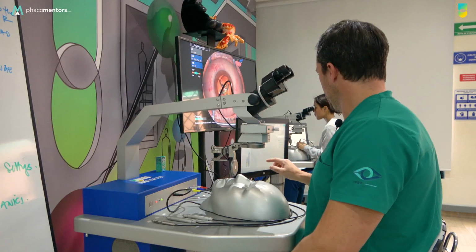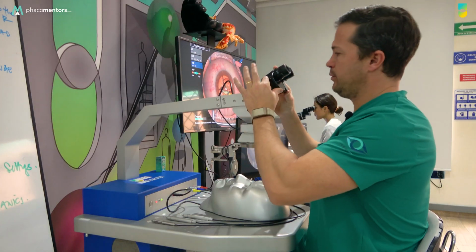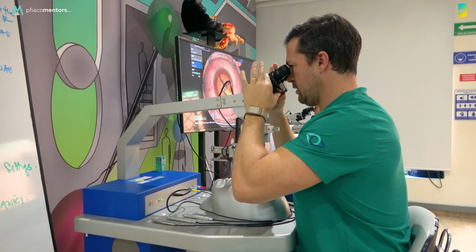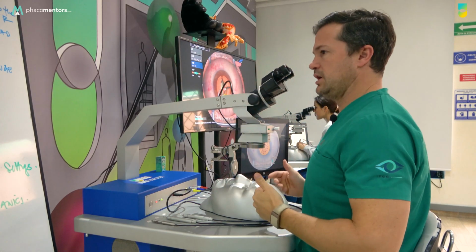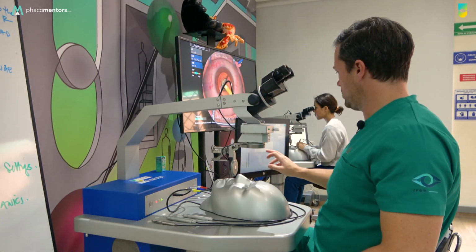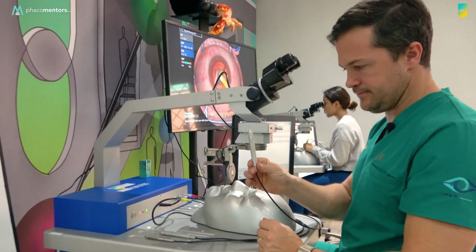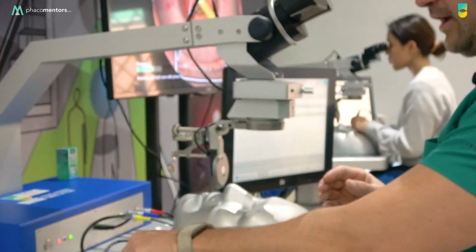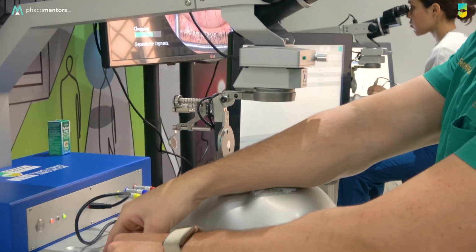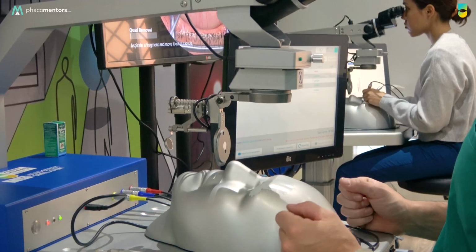Okay, and when you control the visualization, again, remember, in zeros, interpupillary distance, and focus in the structures in order to see in 3D. After that, it's important for you to know the instruments you're going to use. As I told you, you're going to have a second instrument. You're going to have probably a handpiece, and you're also going to have a forceps.